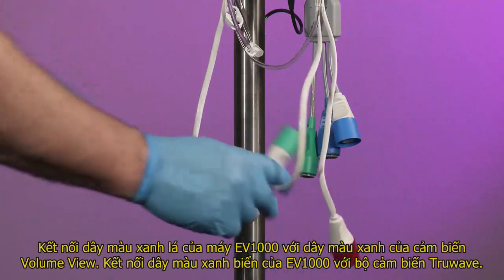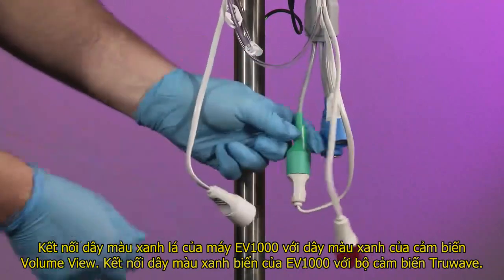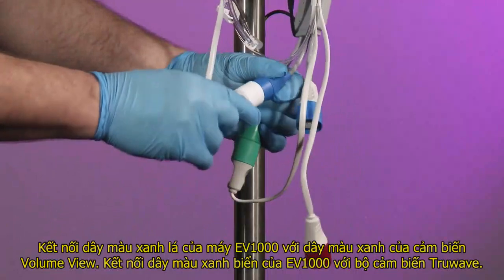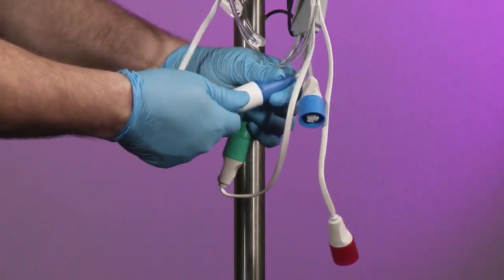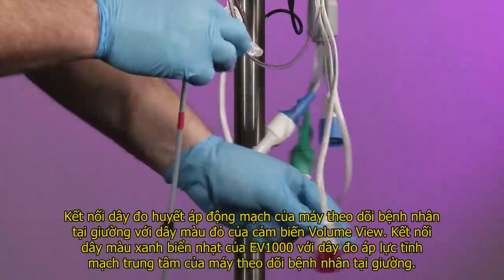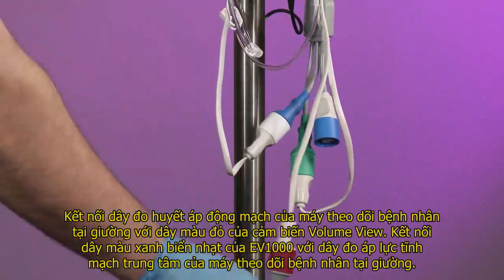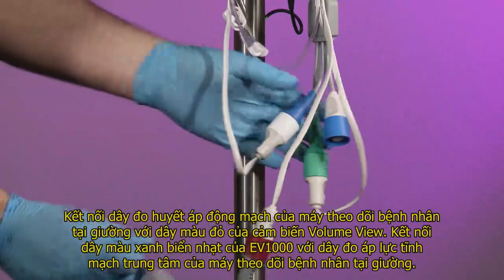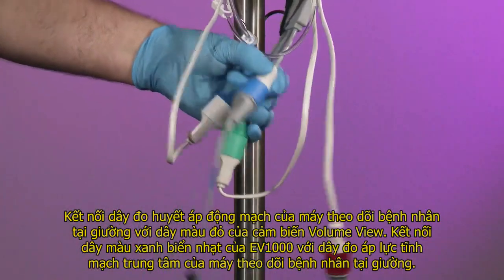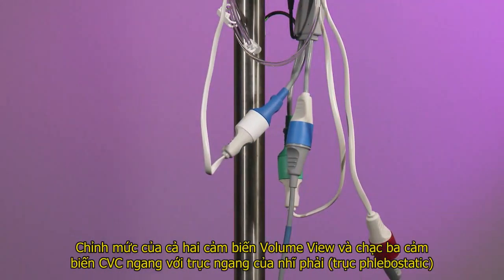Connect the green EV1000 clinical platform reusable pressure cable to the green connection on the VolumeView disposable sensor. Connect the blue EV1000 clinical platform reusable pressure cable to the disposable TrueWave transducer connection. Connect the bedside monitor's reusable pressure cable for the arterial pressure channel to the red connection of the VolumeView disposable sensor. Connect the EV1000 clinical platform white and blue reusable pressure cable to the bedside monitor's reusable pressure cable for the central venous pressure channel.